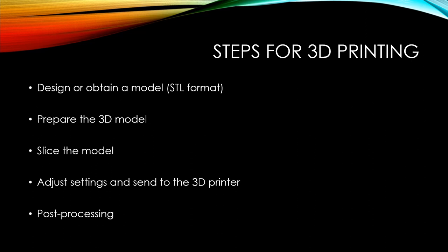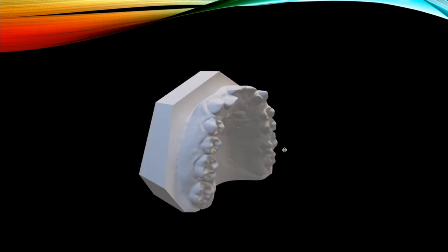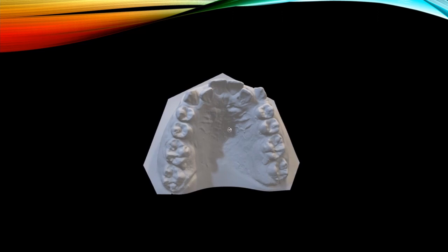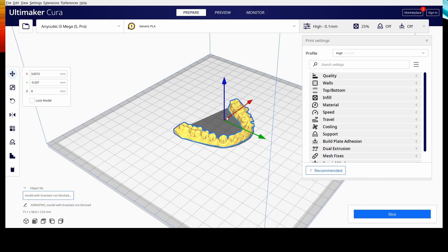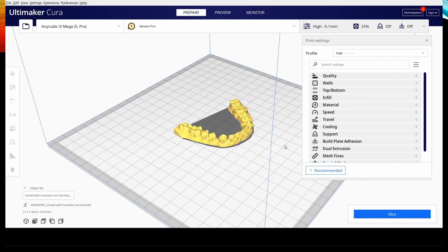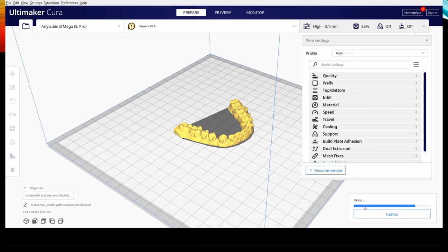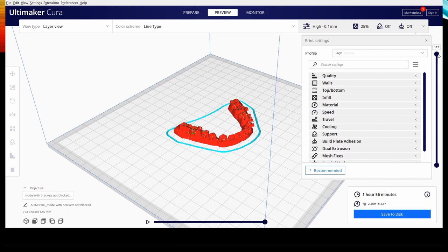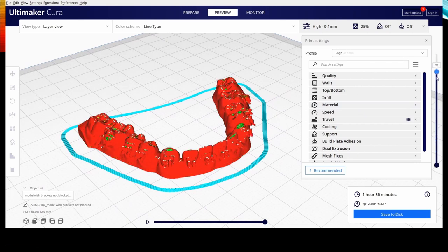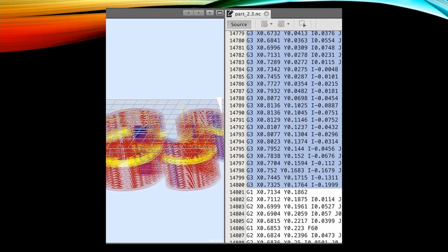After settings are adjusted we do some post-processing, which differs between technologies. We take our dental model, prepare it — for example, cutting or removing the base to save material — and send it to the slicer software. In the slicer we can do basic editing and adjust settings, then slice the object. Slicing creates the layers that will be 3D printed. The slicer also generates a G-code, which is a set of instructions sent to the 3D printer telling it exactly what to do.